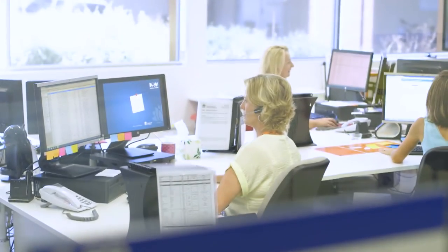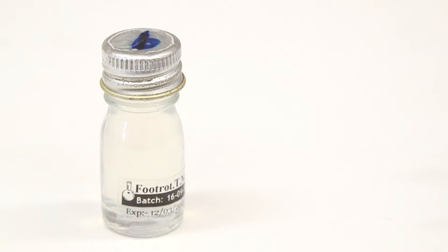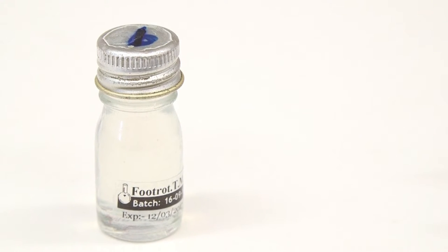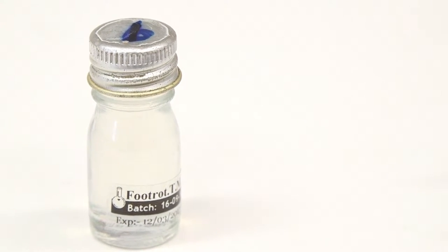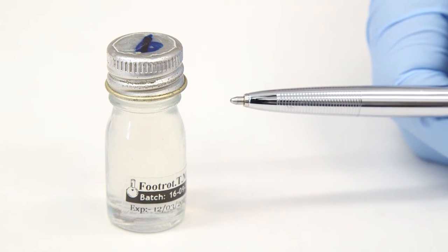To arrange foot rot testing with our laboratory you must first contact our customer service team for a foot rot sampling kit. Prior to commencing sampling, check each bottle of transport media. The medium should be opaque and colourless and within date. Do not use the bottle if the indicator in the medium has turned blue, has expired, or if the bottle is not full. Full is a level approximately halfway up the neck of the bottle.